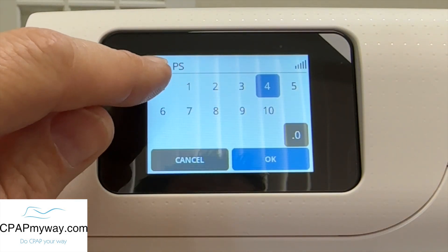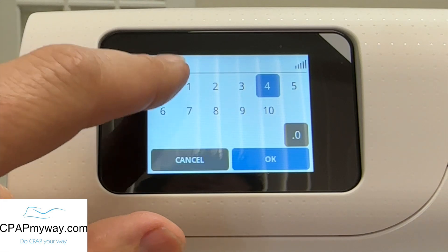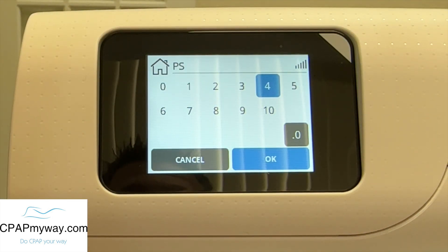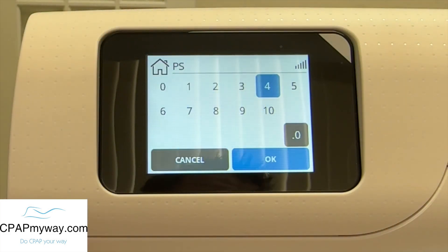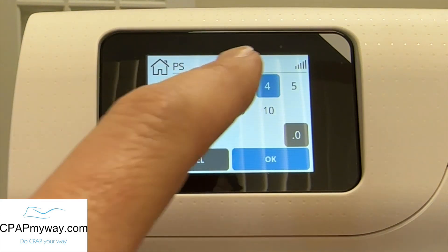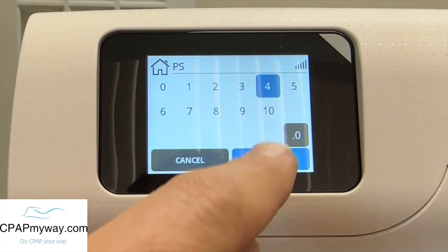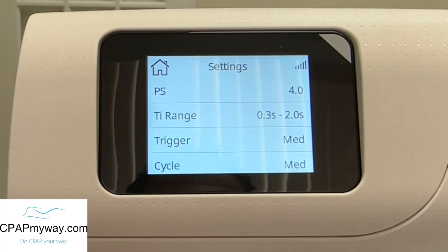Your pressure support can go as low as zero or as high as 10. Of course, if it's zero, that's just a CPAP — it's a fixed pressure. And pretty much honestly, all the way up to three is essentially a CPAP if you really include the flex part of the CPAP options and CPAP machines. Once you get to four, you're really more on a bi-level, and it can go as high as 10, depending on what you're trying to do with this device.